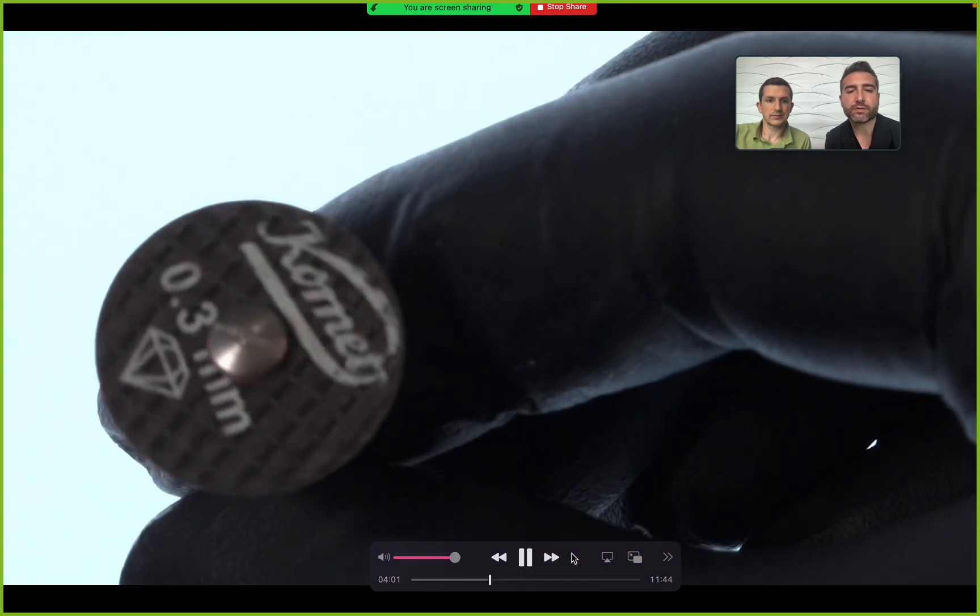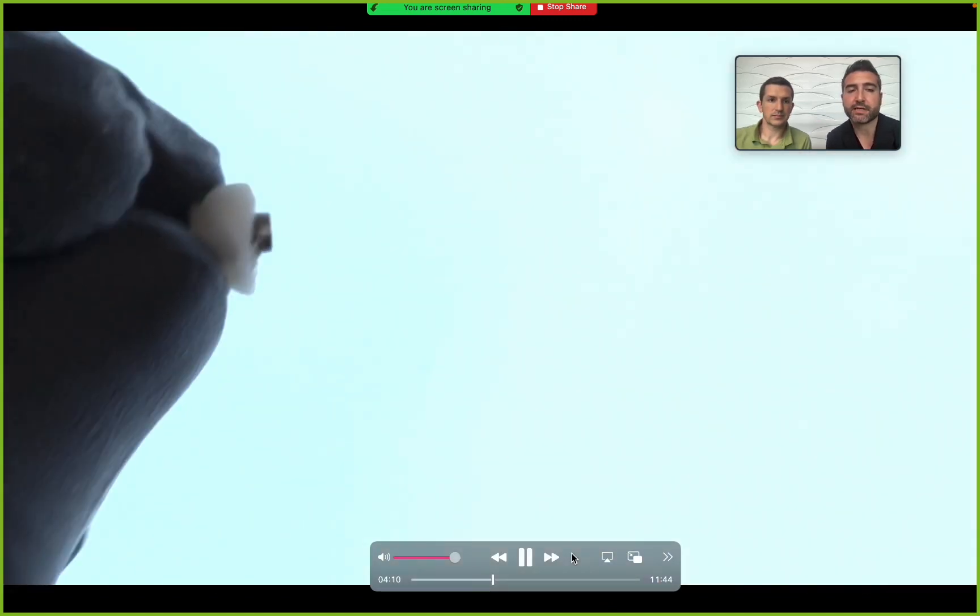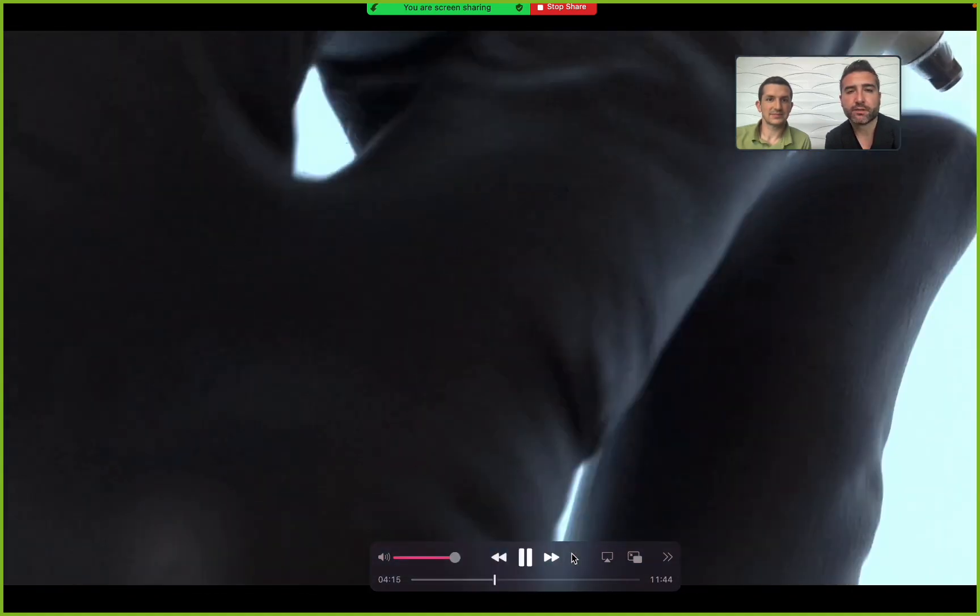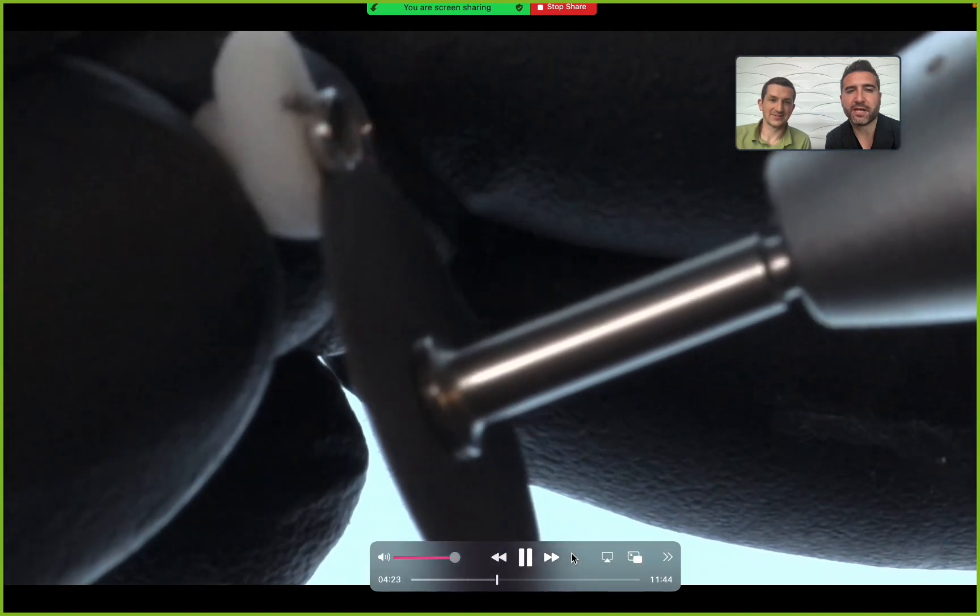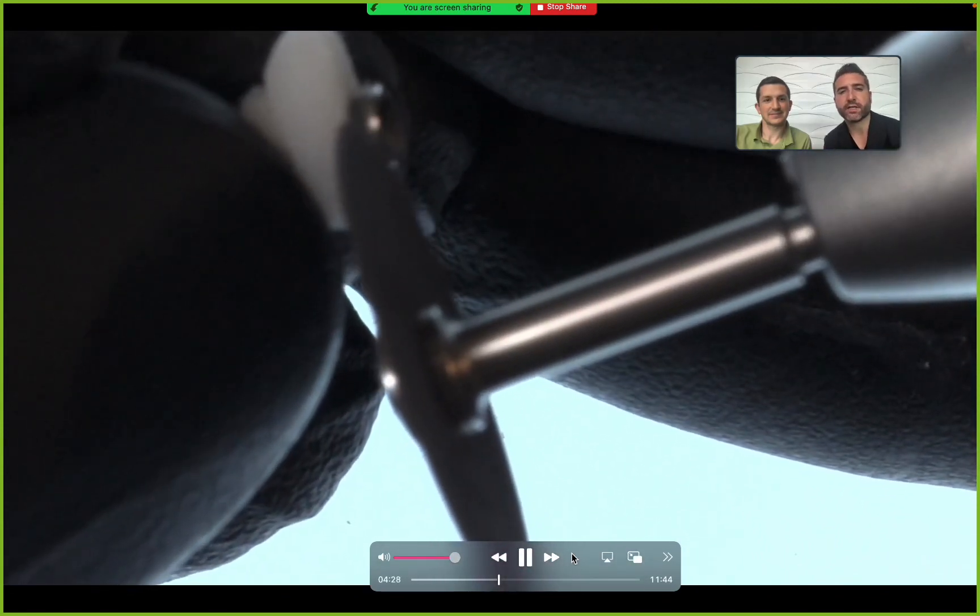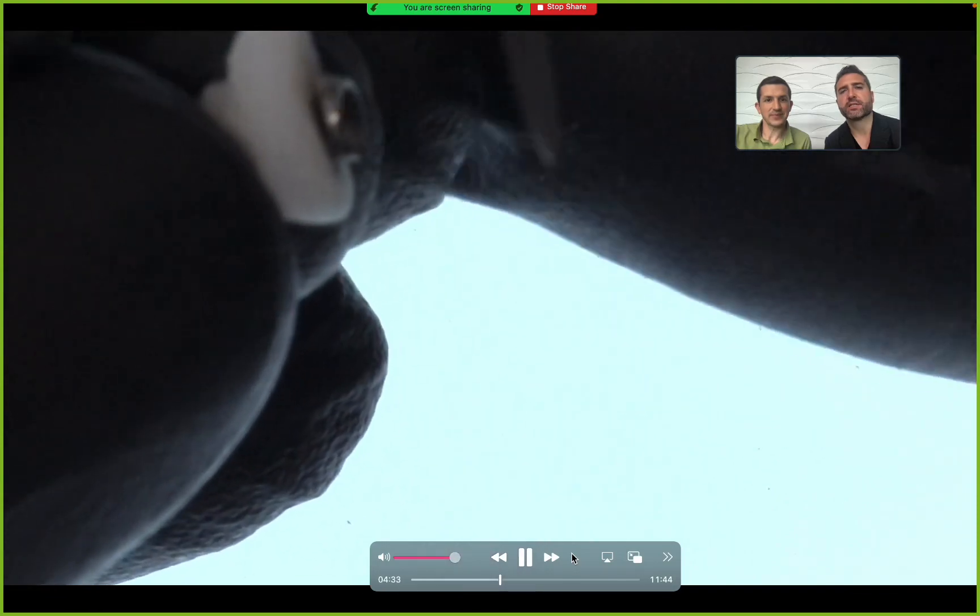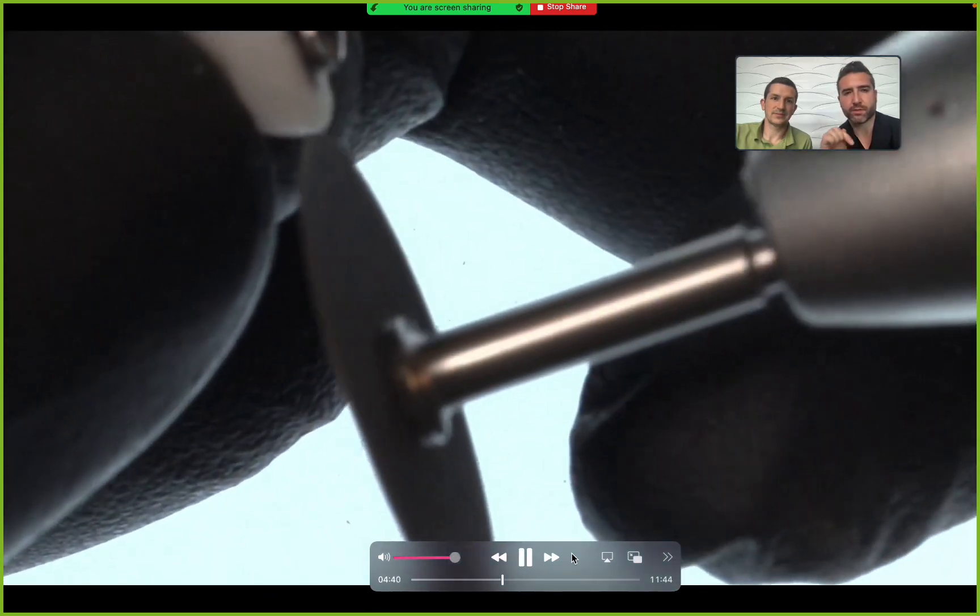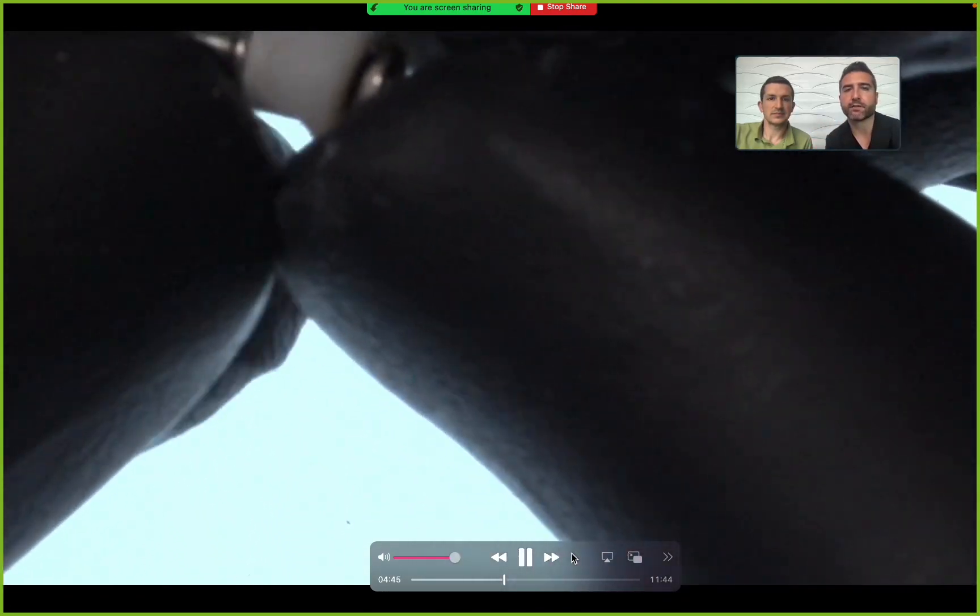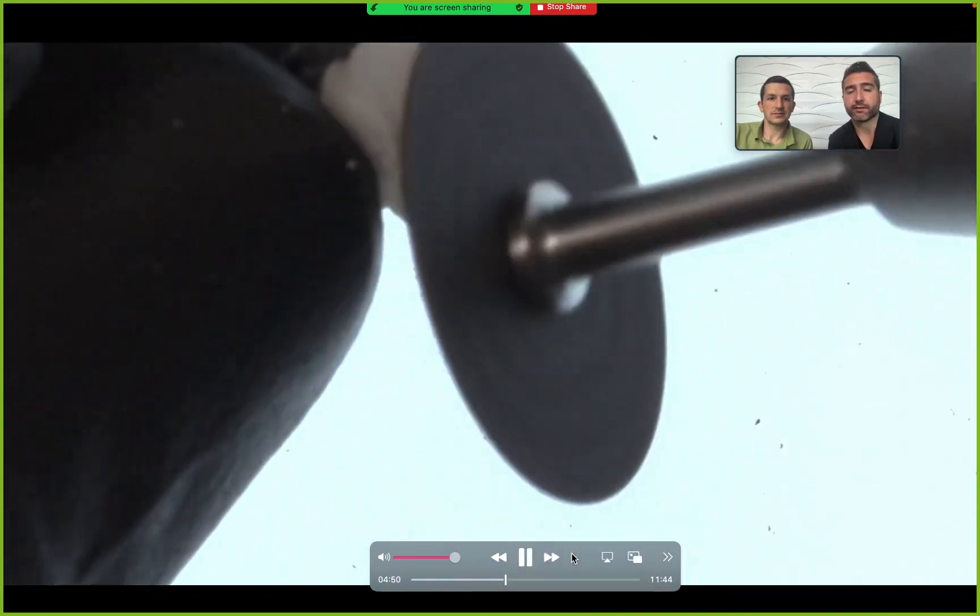To remove the extraneous titanium sticking out of the occlusal, I use the Comet disc. It cuts metal the best I've seen - designed to cut titanium. You'll see sparks flying, so be careful not to nick your finger. What I do is go around and hit it from all different angles. You don't want to go through in just one swipe - weaken it circumferentially around, then it flakes off with your finger. Use your finger to pop it off at the end so it's not going flying.